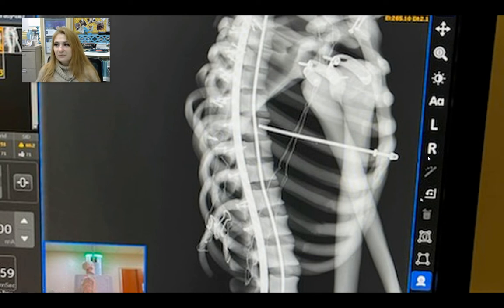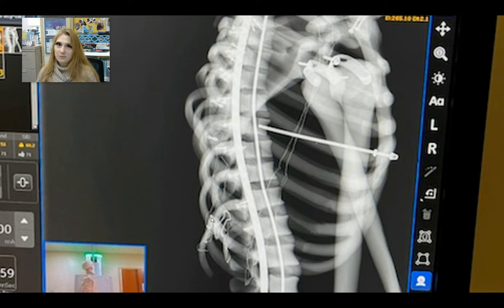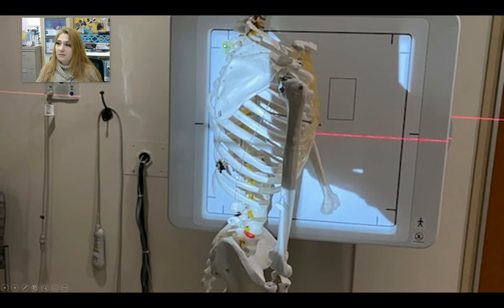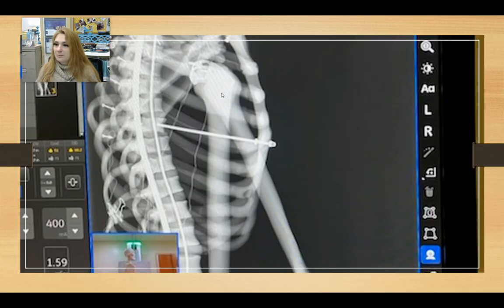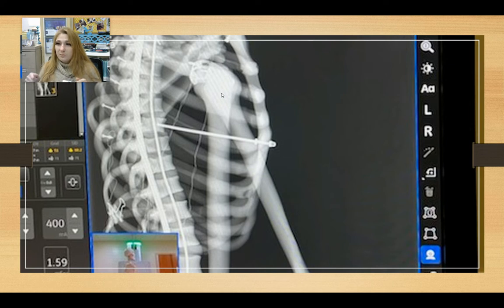So it's not too bad — not a diagnostic image in real life, but you can see that some of the ribs on my plastic skeleton are starting to superimpose. Now what's going to happen if I move her directly back so that her spine is no longer in the center of the x-ray beam, but in the fanned portion where the beam is diverging? Let's look at what happens to the posterior portion of her ribs. Very rotated. I didn't rotate her forward or backward for this image — this is simply me scooting her back, and see how much of an effect that had on her image.